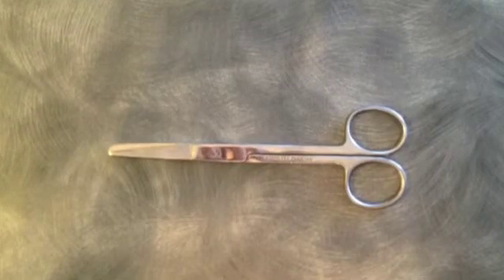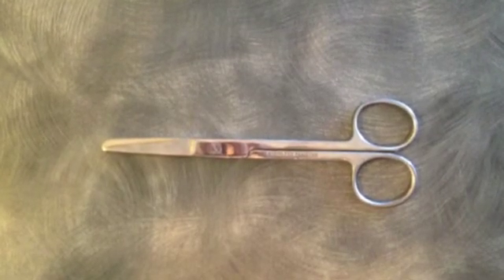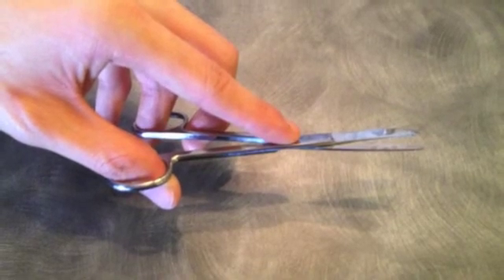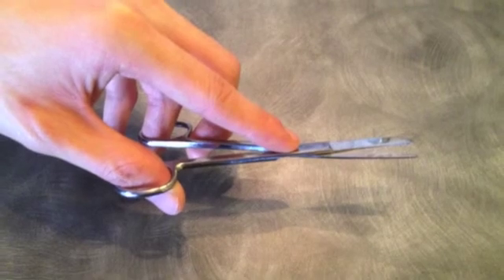Right hand dominant people generally use the scissors with the screw facing up. This will push the blades together and allow them to cut. Left handed users should flip the scissors over, otherwise the blades could distract from each other and make cutting more difficult.